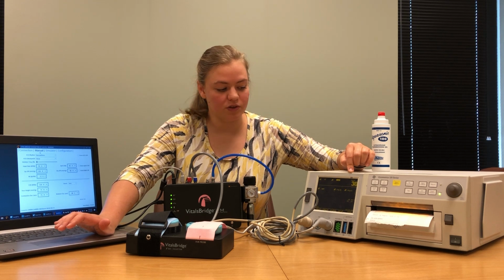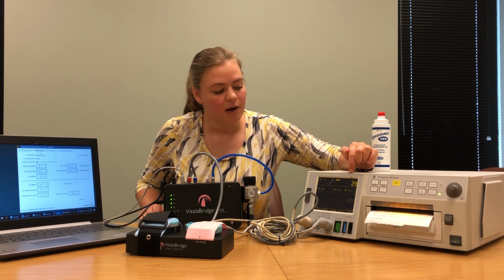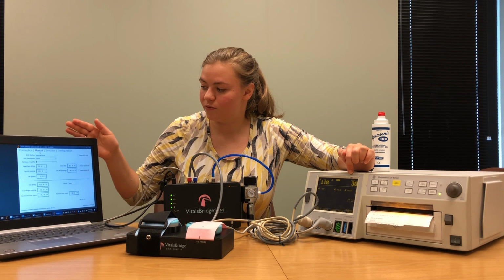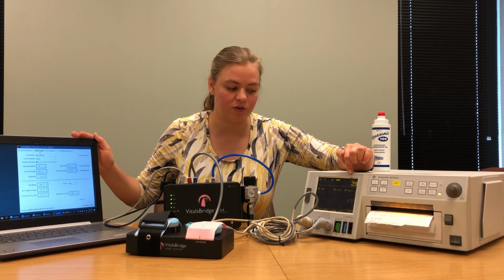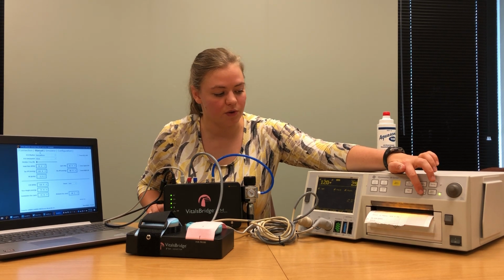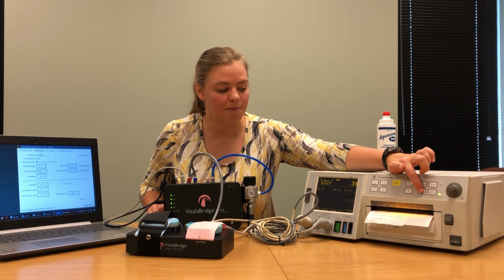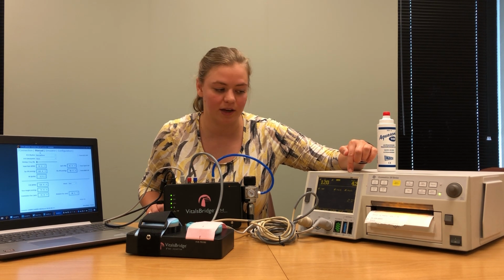Your TOCO values should continue to perform nice calibrations. If you notice, however, that your TOCO value in the trough of your contraction signals is higher than the number that you set for your reference value, you can always reset your reference value during the trough of a contraction by pressing the UA reference. But make sure you don't push that button while you're in the middle of a contraction and the numbers are rising or falling.